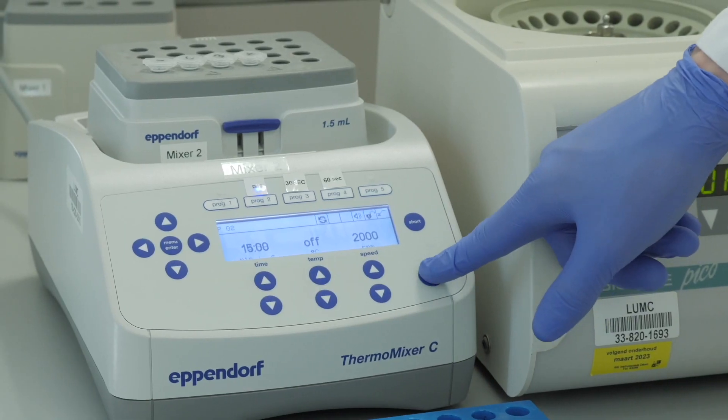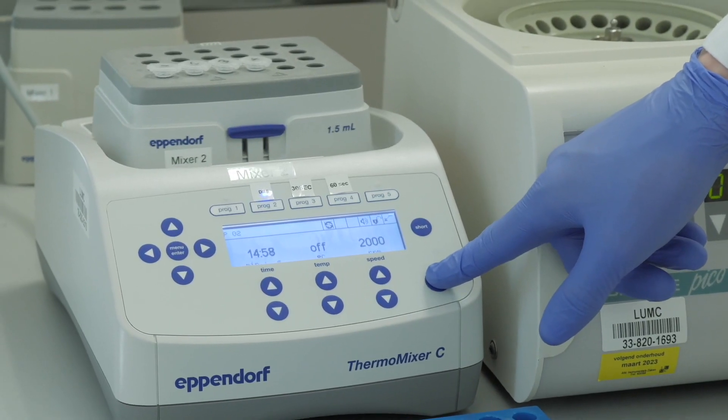The test tube is then shaken vigorously in order for the fluids to mix well with the dried blood spot.